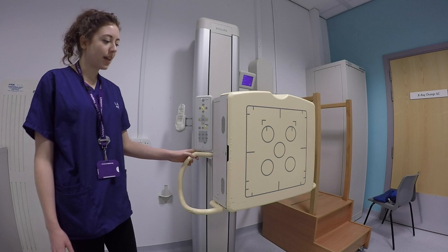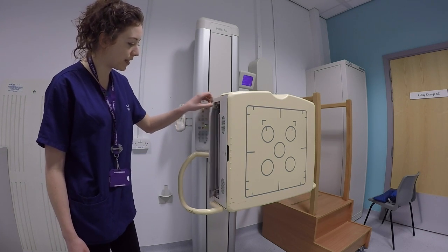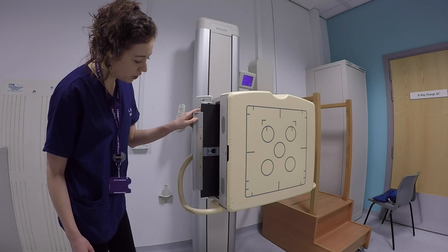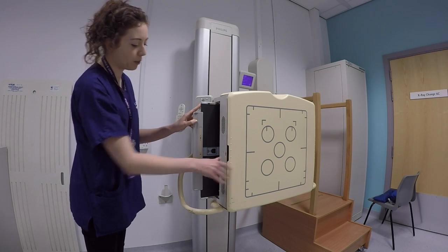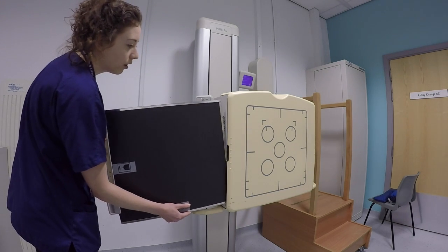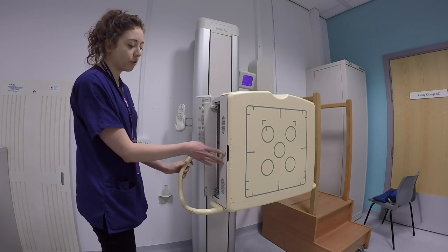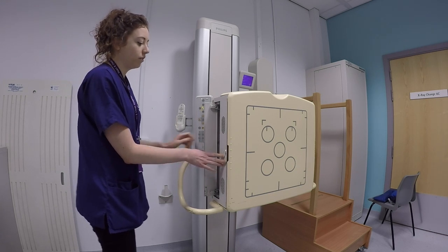Right, so this is the wall detector, and you insert the grid in a similar way. So there's a little cabinet behind here that holds them. If you just press that, that'll open. And then there's two slots in there. So this is the 140 grid, which is used for chests and the wall stand. And you insert it in a similar way. So you just press the button, that little clip will come down. And then if you just slide that in, and then the light will be continuously orange once the grid's properly inserted. Sometimes you might need to give it an extra push.